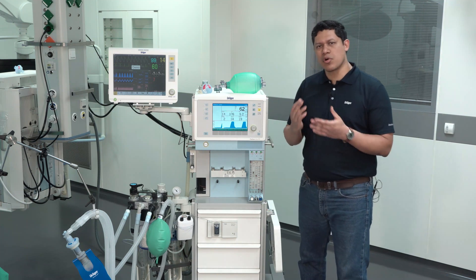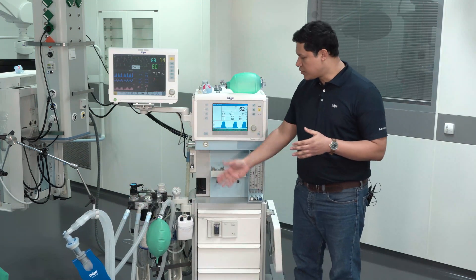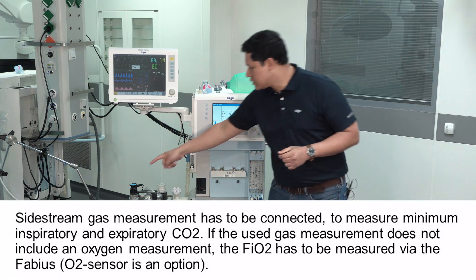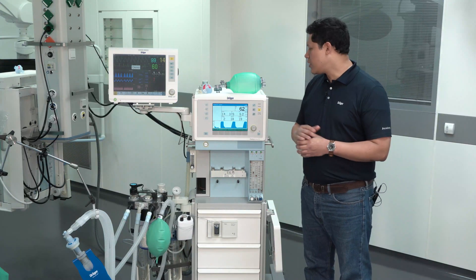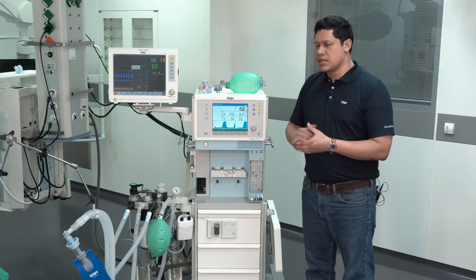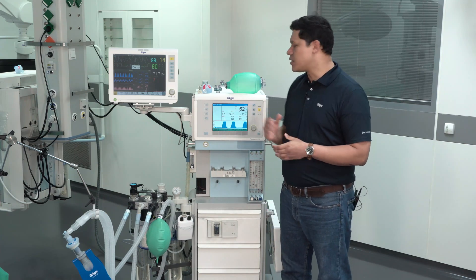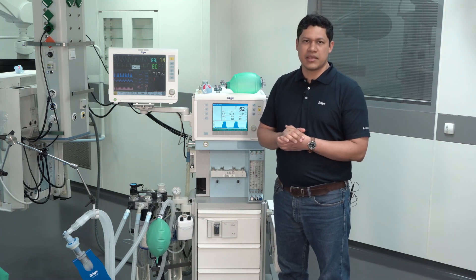The gas measurement sample line should always be tightly connected to the water trap and to the patient filter, because it is through this system that we are measuring the CO2. The inspired oxygen is measured using the oxygen sensor. You have to constantly visually monitor the values of FiO2 and CO2. Because of the rebreathing system, the measured values might differ slightly from the set ones. Be aware that the movement of the manual breathing bag will be in synchronization with the mechanical ventilation, and it should always be full and evenly filled.